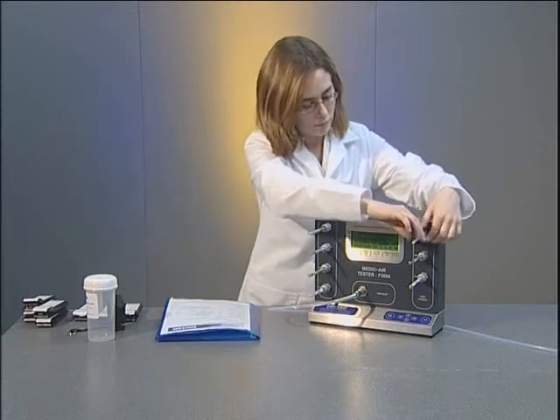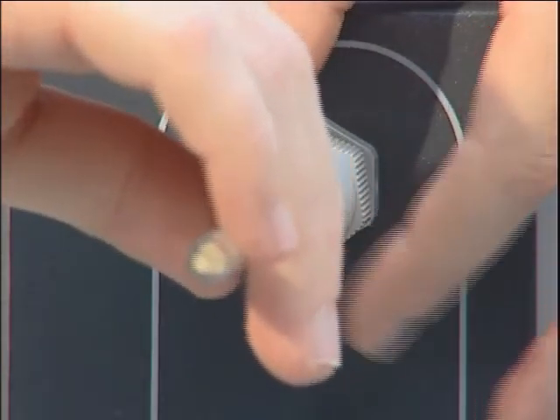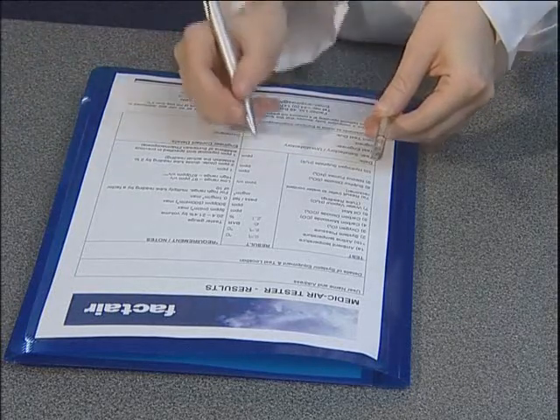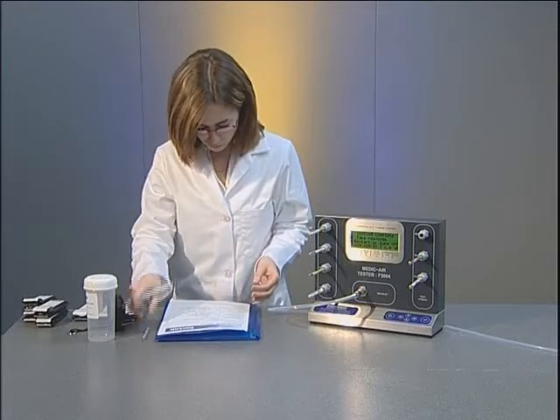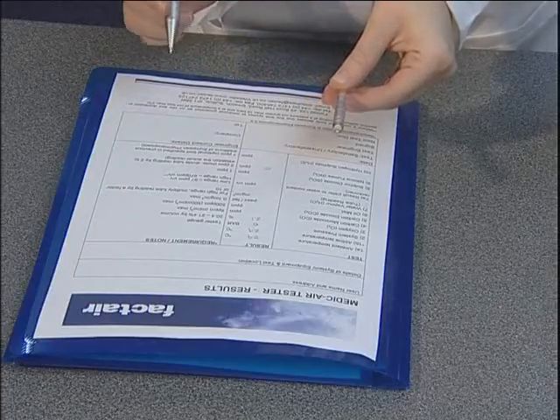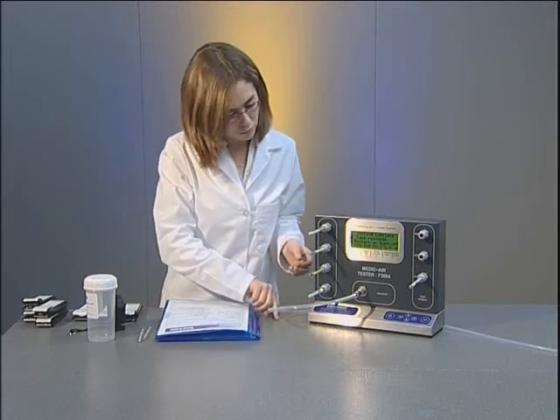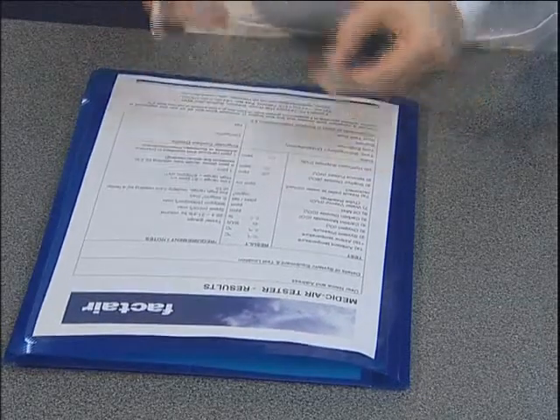In this sample test of a medical air system, the maximum permissible level of nitrous fumes is two parts per million. For this detector tube, the total length of discolouration will be double the actual concentration level in parts per million. Therefore, the reading should be divided by two to establish the correct concentration level. For sulphur dioxide, the maximum permissible level is one part per million and this will be shown as a white stain against the grey-blue crystals. For hydrogen sulphide, the maximum permissible level is also one part per million and this will be shown as a pale brown stain against the white crystals.